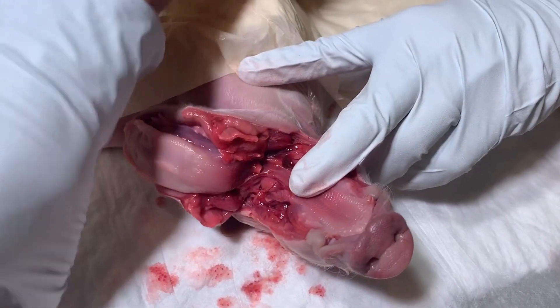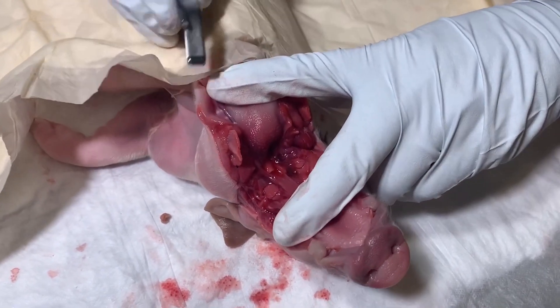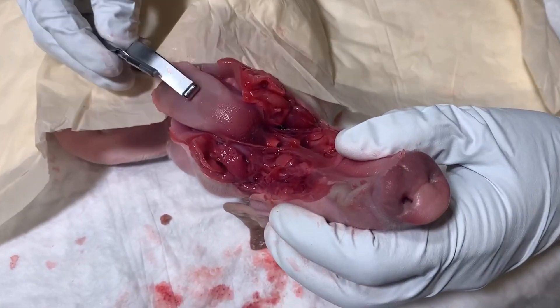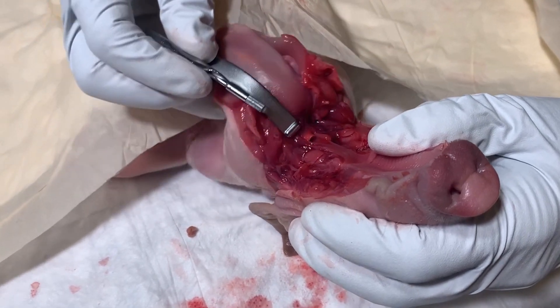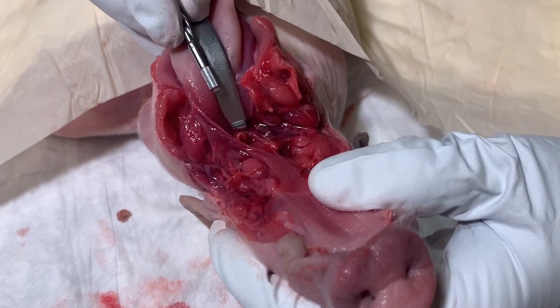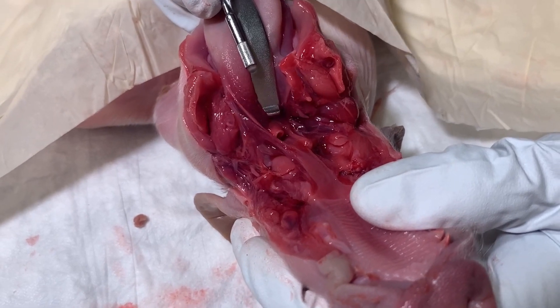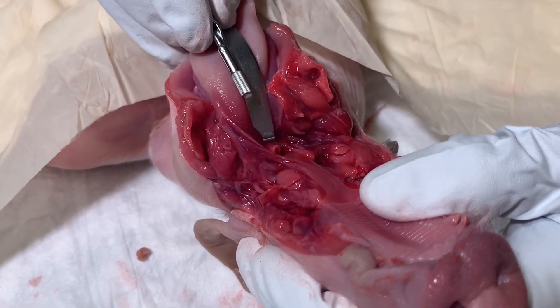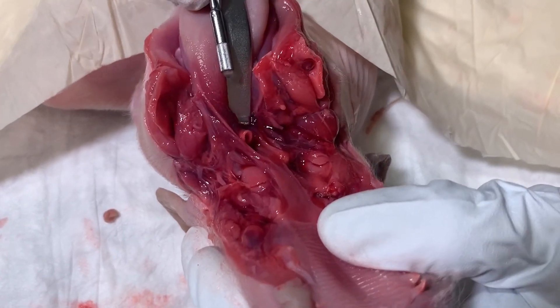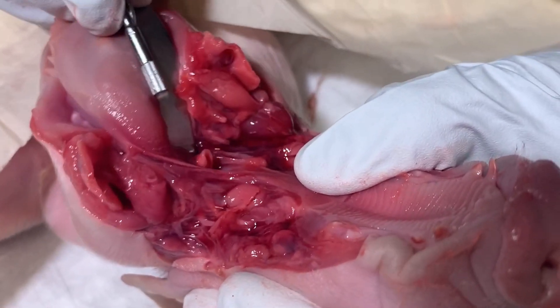If you take your curved blade, you notice it literally fits on the tongue. Using it painstakingly slowly down the tongue, you find the vallecula — that spot right before the epiglottis. Once you find the vallecula and put pressure on it the correct way, you can see how the epiglottis now stands at attention and moves out of the way, allowing you access to the cords.